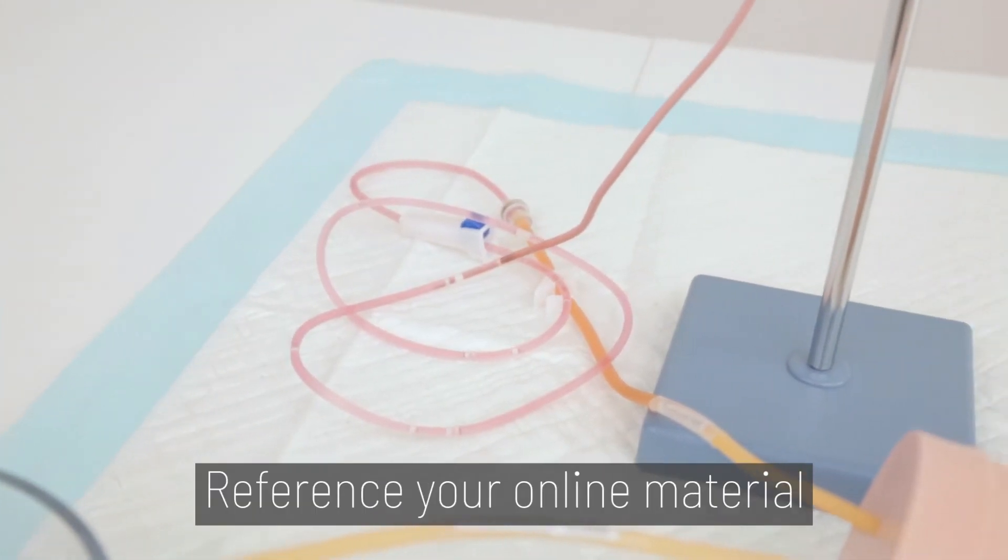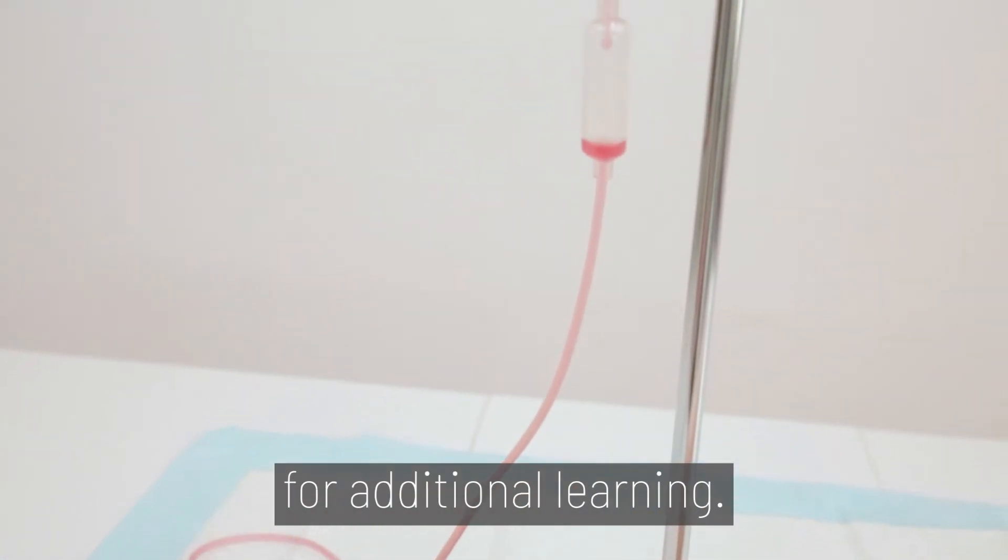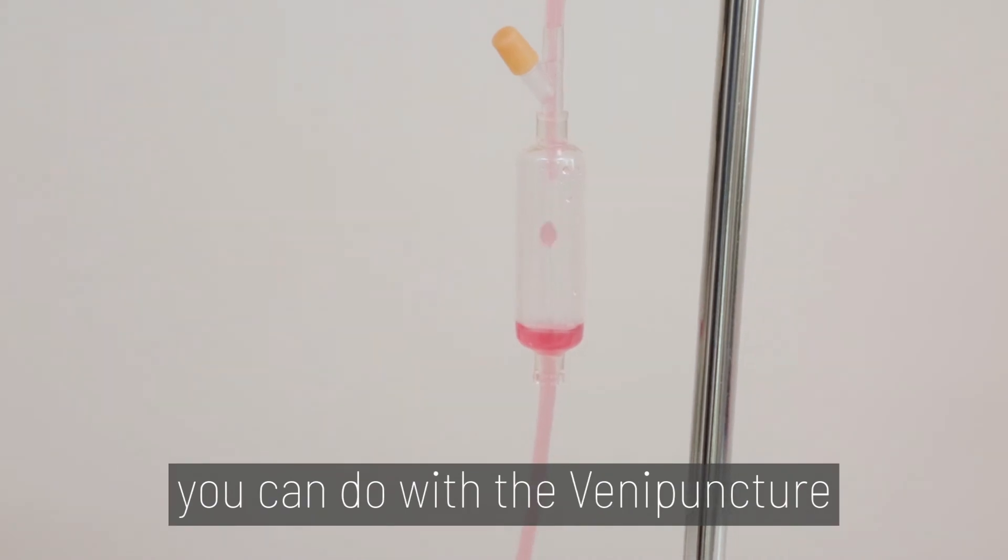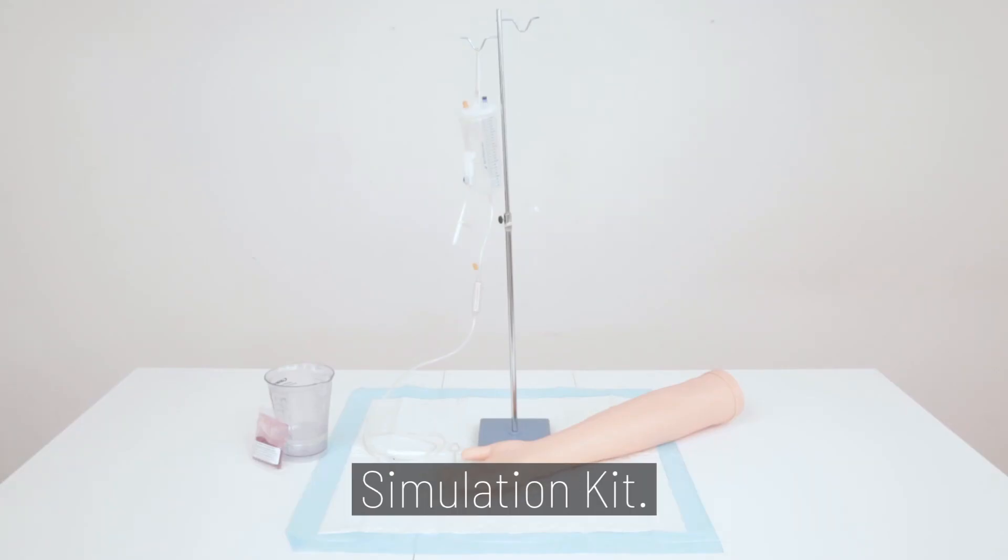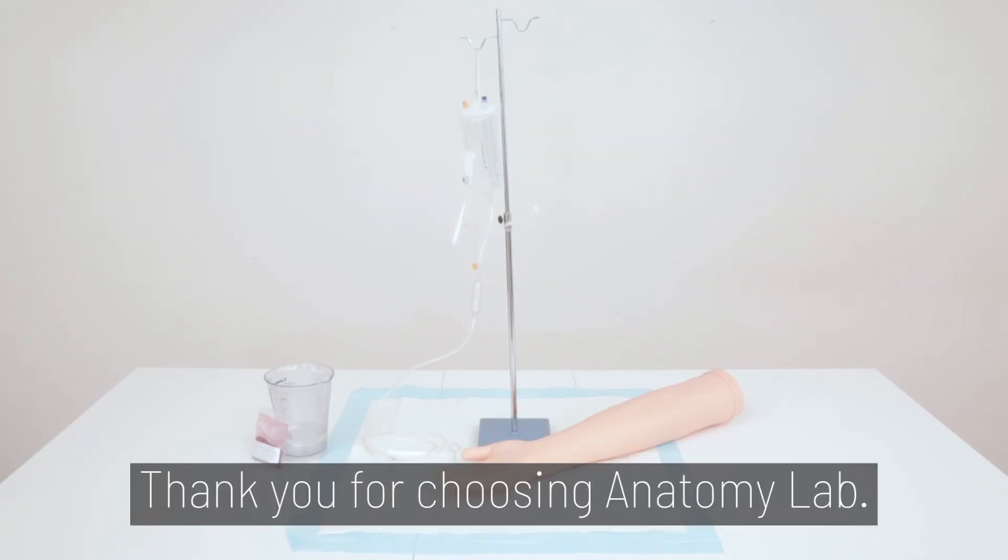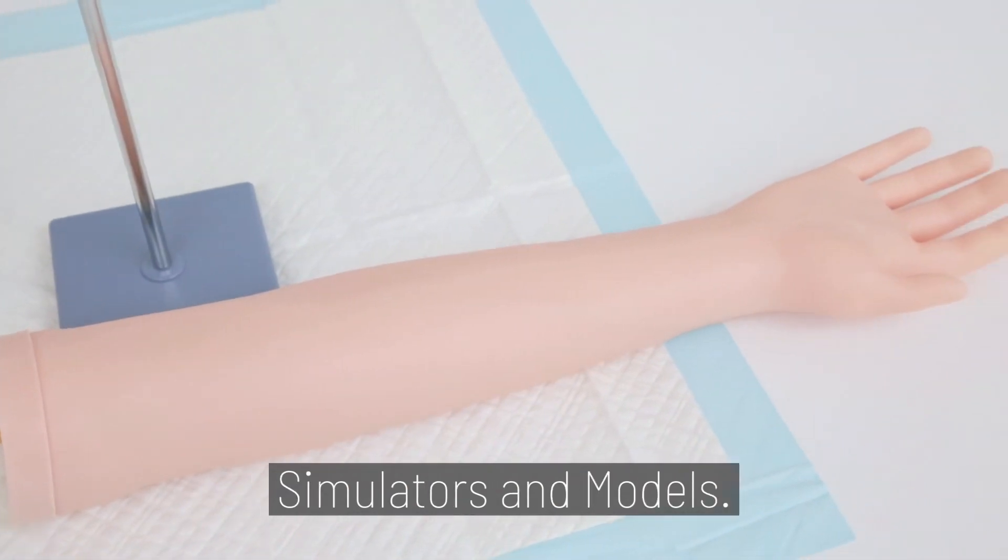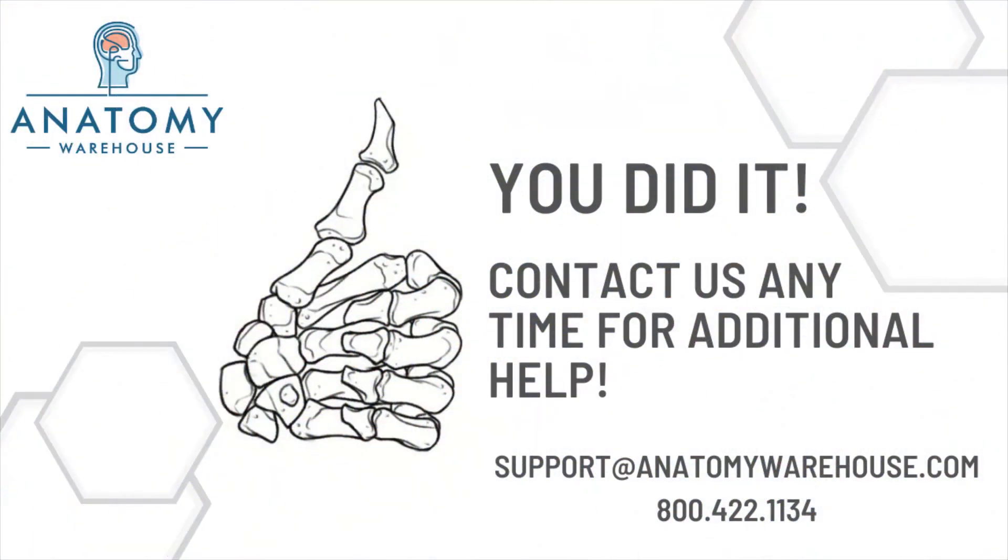And you're finished! Reference your online material for additional learning. Watch our other videos for additional procedures you can do with the venipuncture simulation kit. Thank you for choosing Anatomy Lab, your trusted source for anatomical simulators and models.